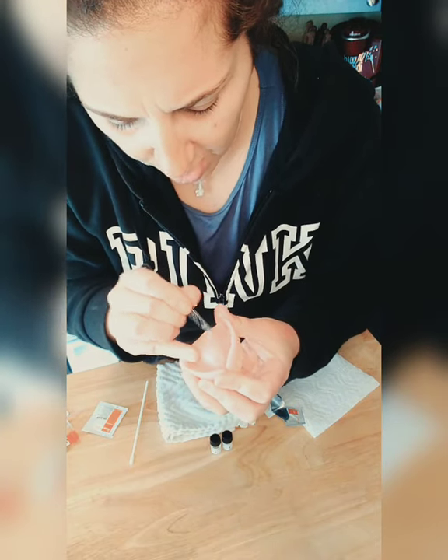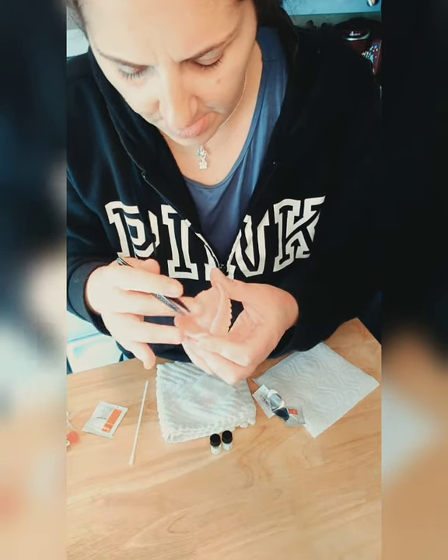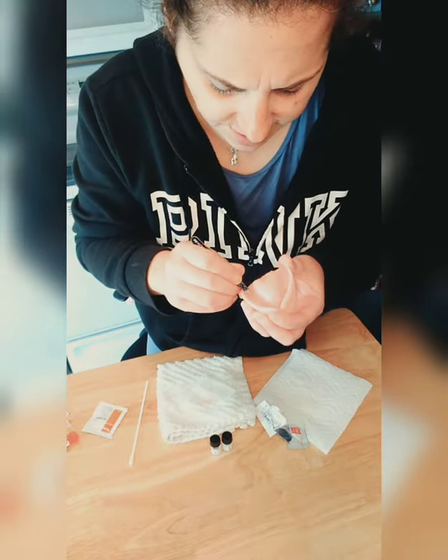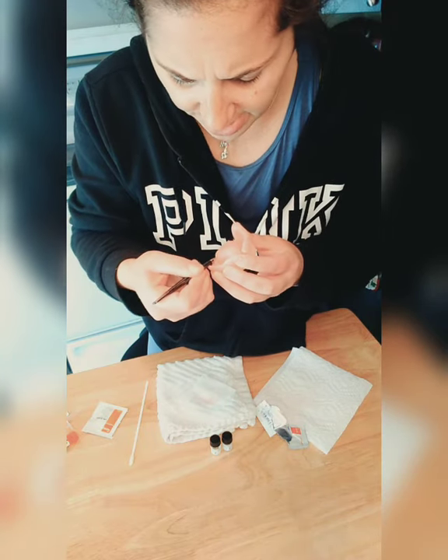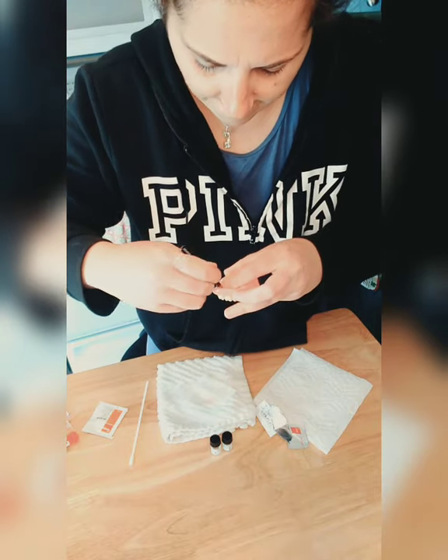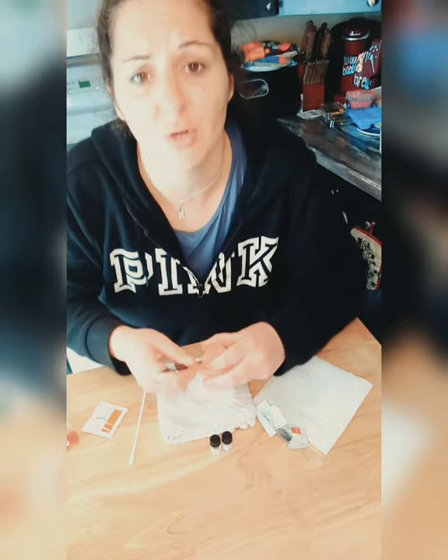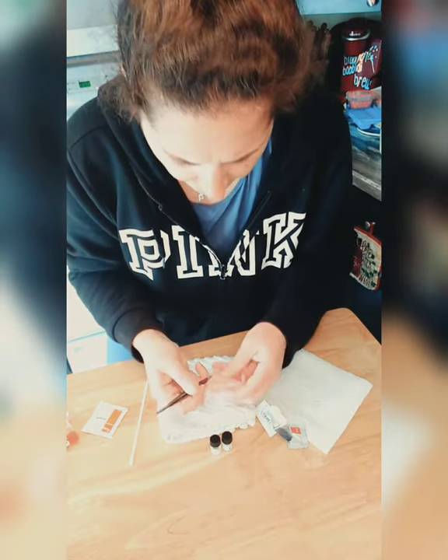James, one of my avid followers, told me he was having a problem taking out Denture Fit and wanted me to do a video on it. I've never in my life had a problem taking it out — until today. I kind of knew that was going to happen because it's been a while. It's actually lifting pretty well, it's just I can't grab it with my tweezers. I have a bunch of autoimmune diseases and my fingers swell so I can't really grip things.